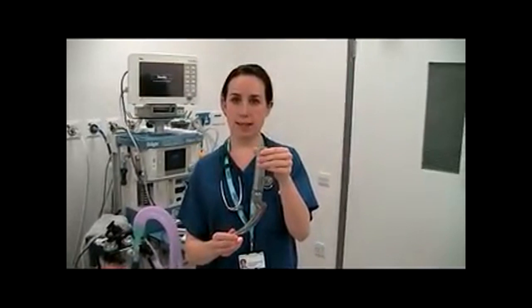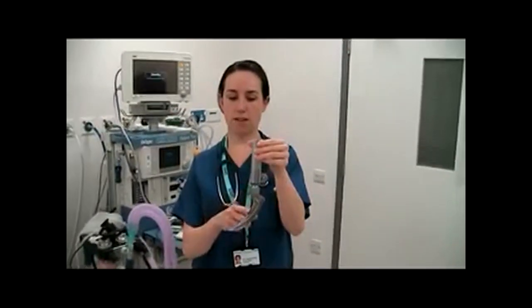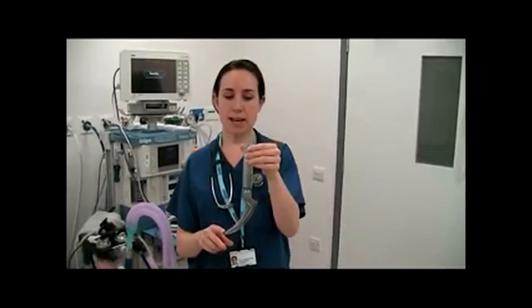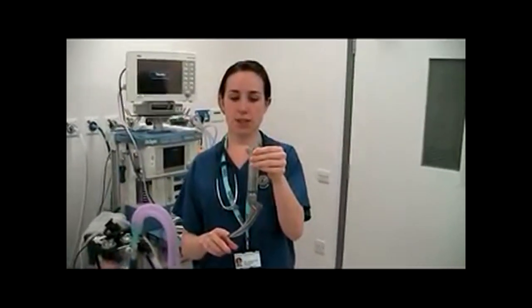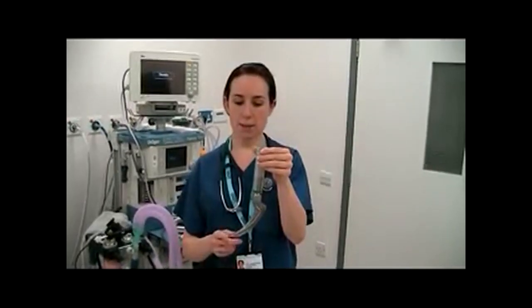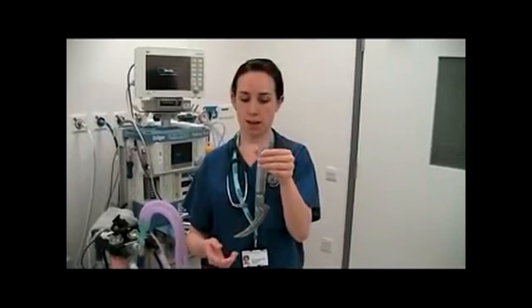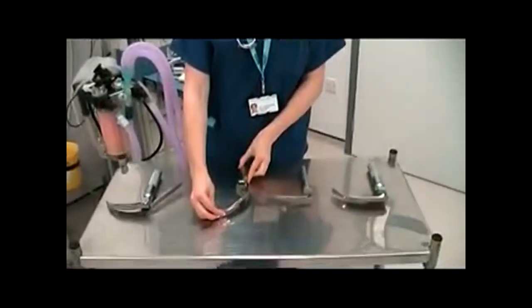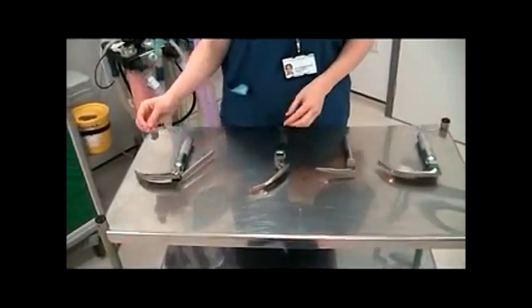The third blade is the polio blade. It has an angle of 150 degrees. It is used in obstetric and bariatric patients and the tip is inserted into the vallecula to help lift the epiglottis out of the way in order to view the larynx.